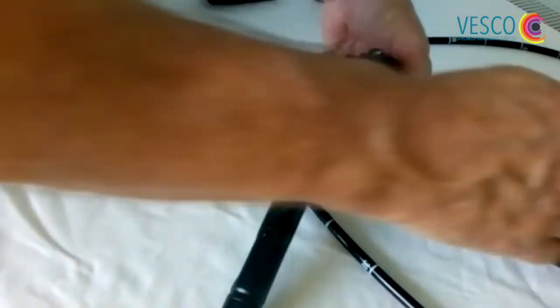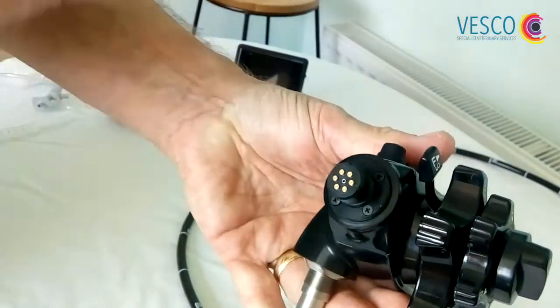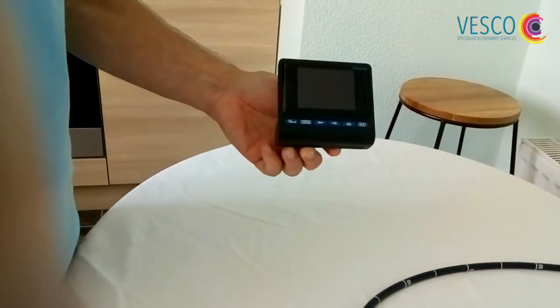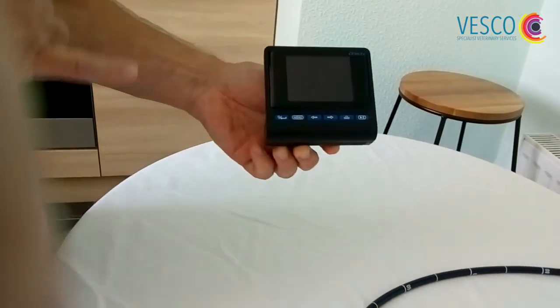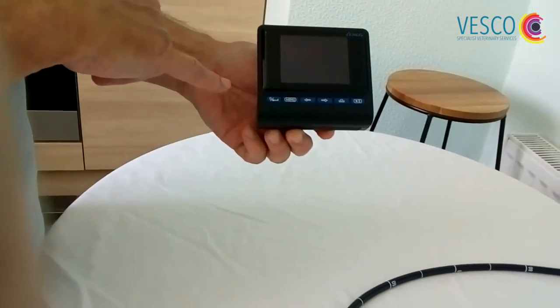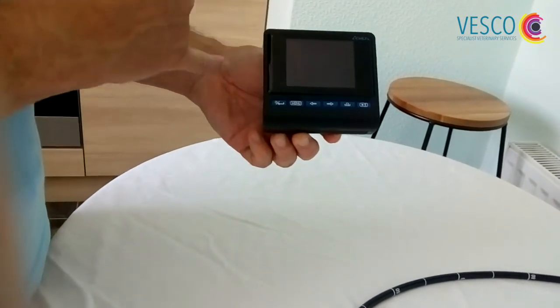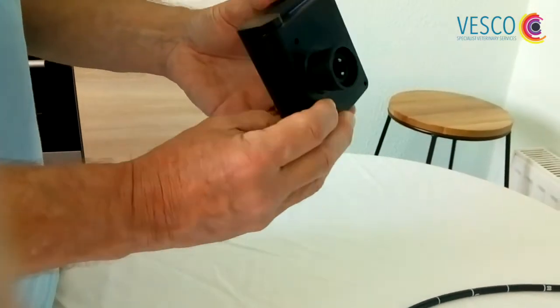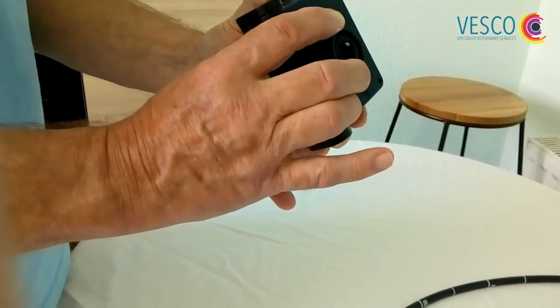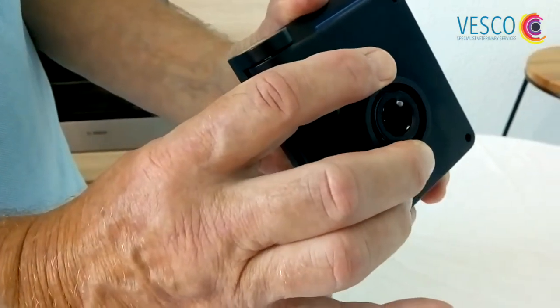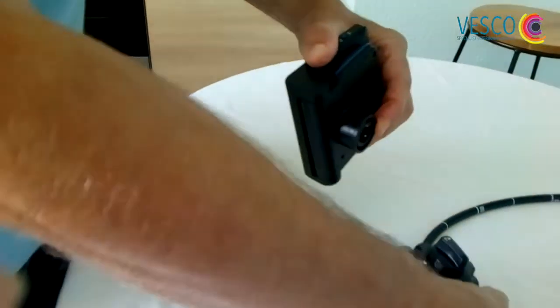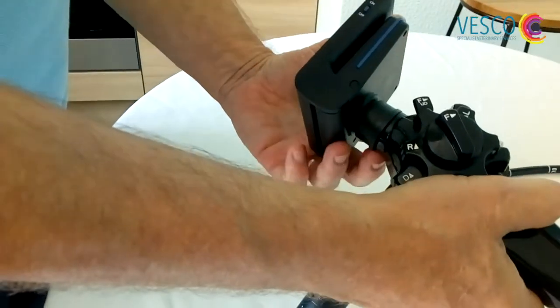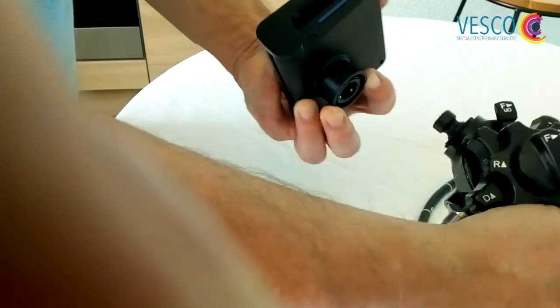Underneath here you will now see the electronics exposed. We're going to attach the small viewing screen right here. Once we turn this on in a few seconds, you'll be able to see a live image on the screen. We can record videos and stills, and perform the white balance operation as well. What is important when attaching and detaching this screen from the body of the scope: on the back there is a collar that must be pulled down to engage and disengage. By pressing down, attach it and release. That will click onto the end of the scope. To release the screen, simply pull the collar back and detach it.